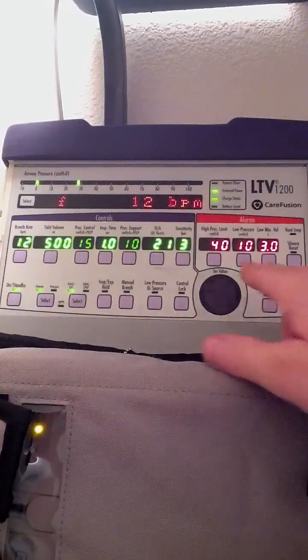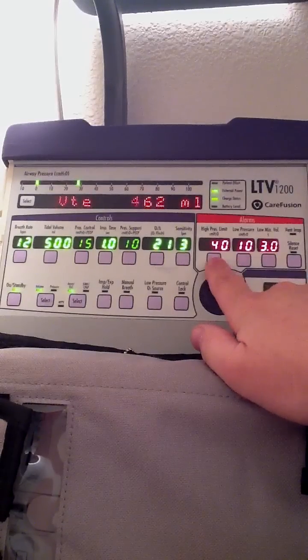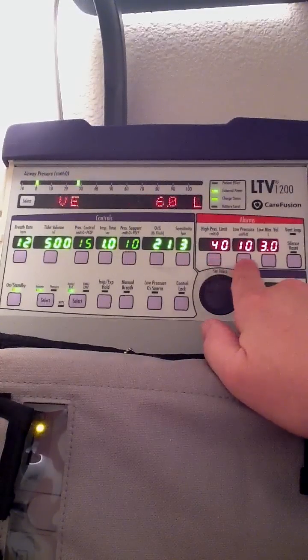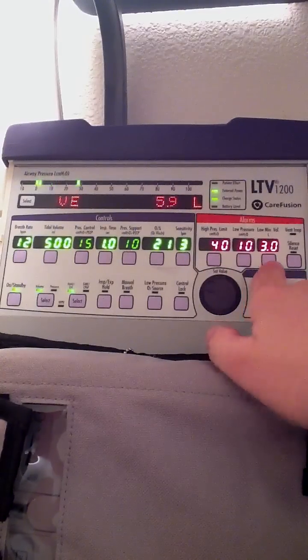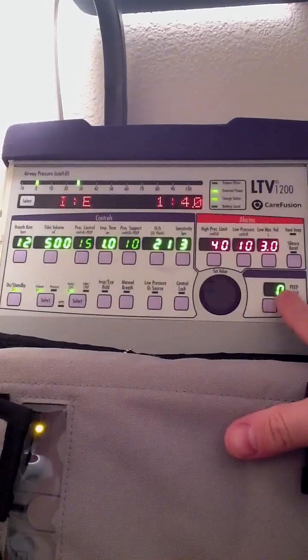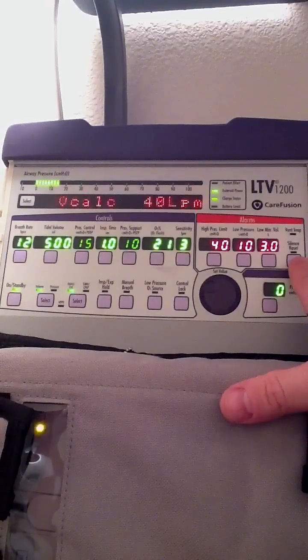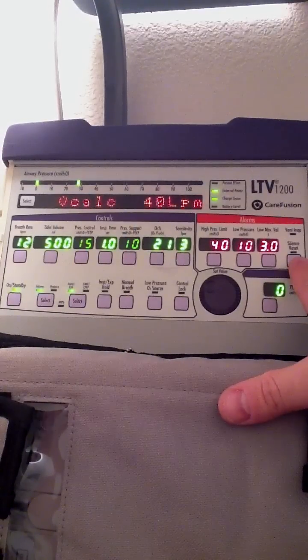You can also see that I have some default alarm settings: my pressure limit is 40, low pressure is 10, low minute ventilation is 3 liters, and my PEEP is 0. And there of course is the silence/reset button.